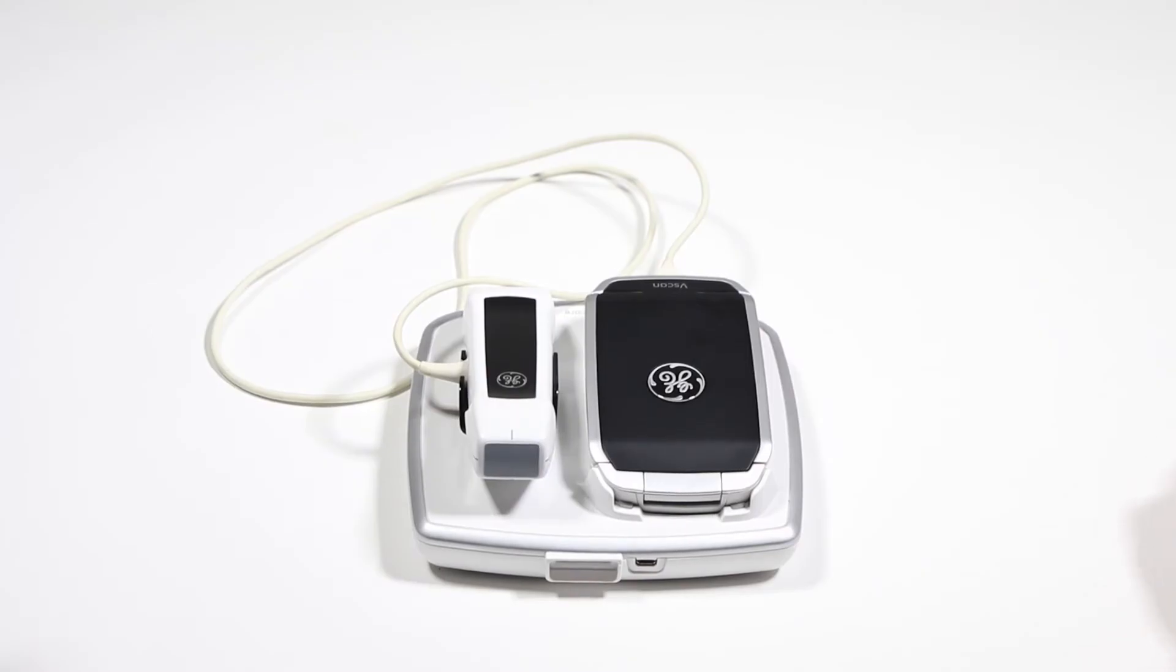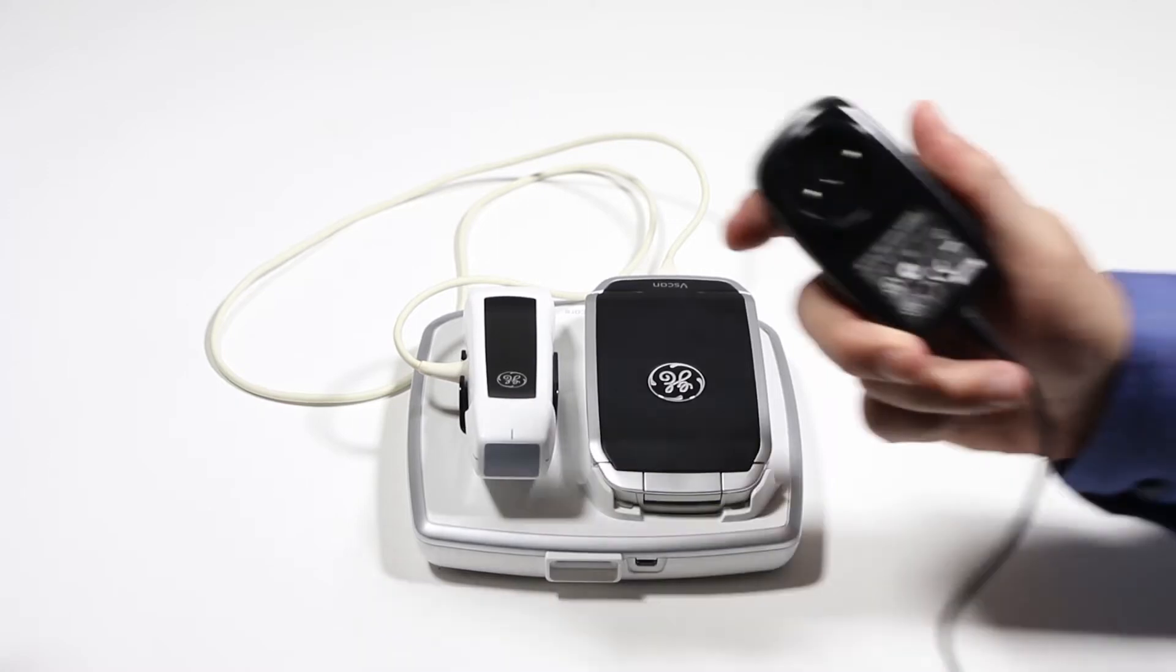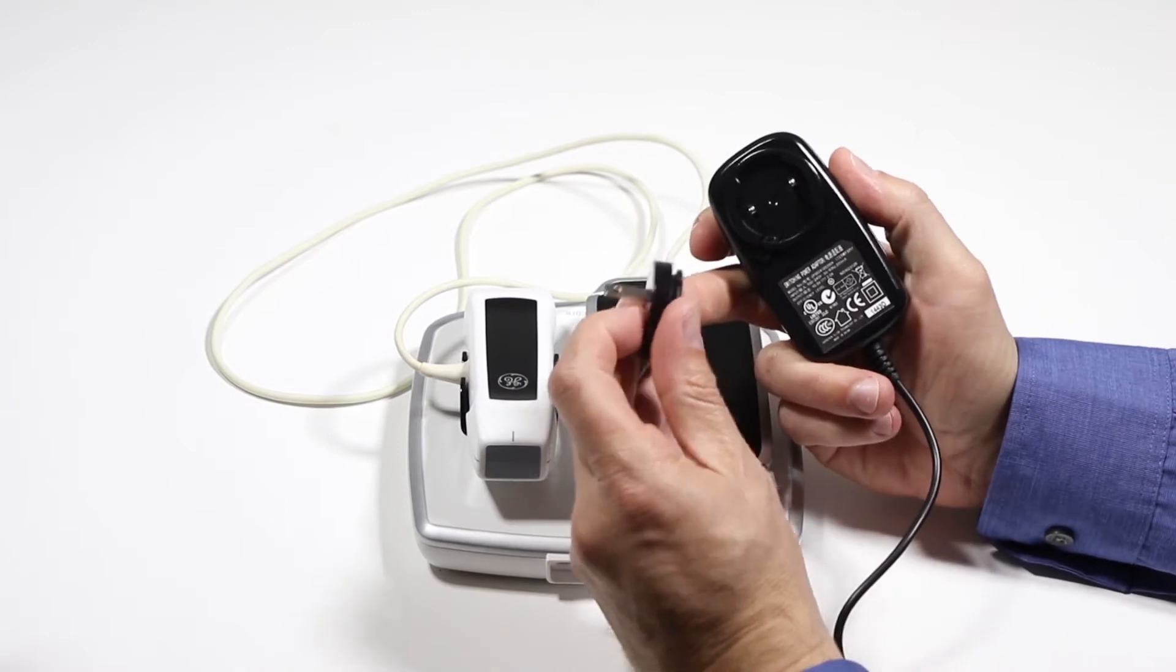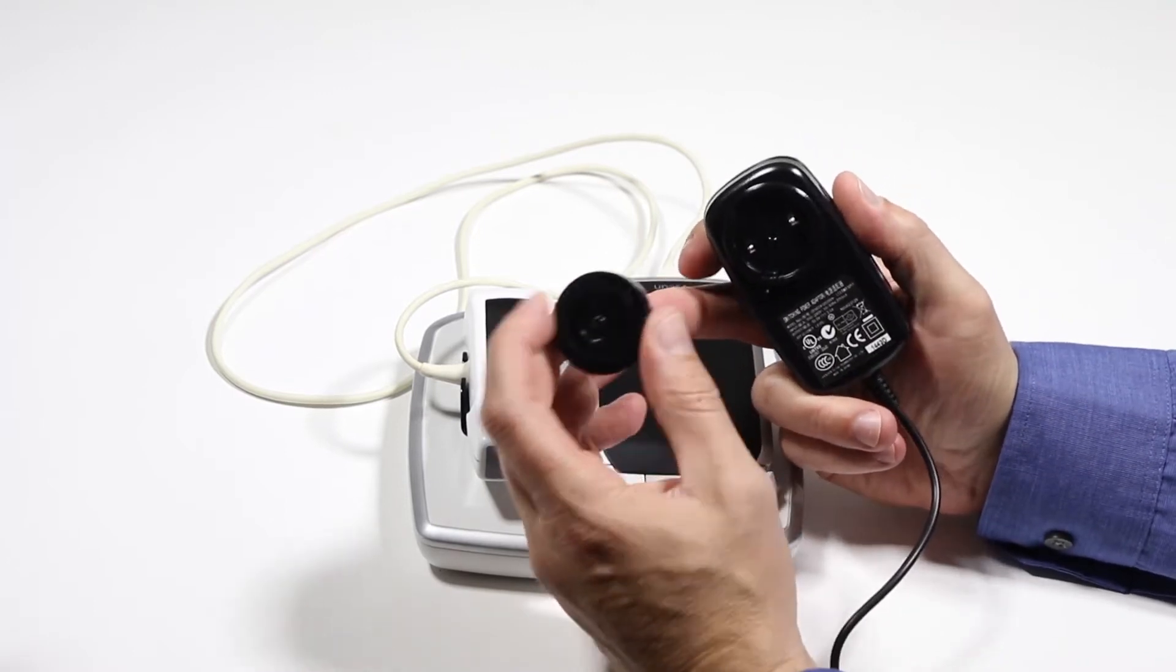Welcome to the vScan training. When you first pick up the system and open it up, you'll find that your power connection looks like this and you'll have a bunch of little plugs that look like this.